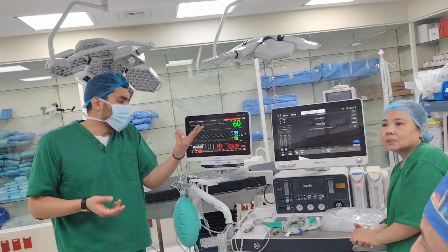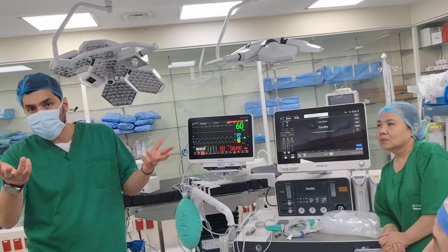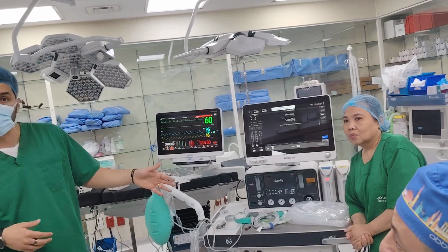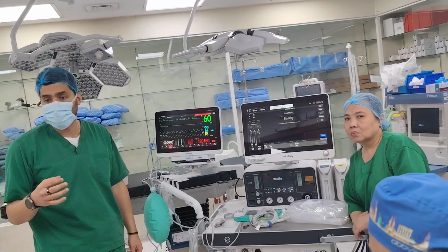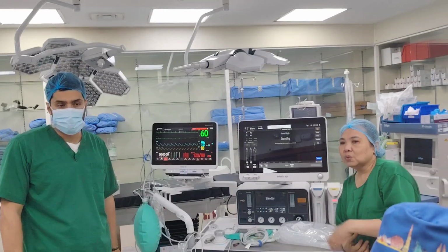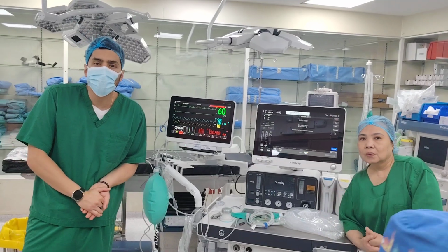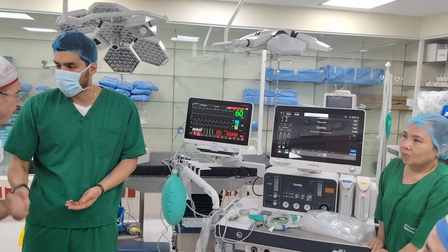Organizer request, two things. To be honest with you, that's one you have to buy. Second thing, honestly speaking, maybe next time you can give this feedback to the engineer: hey, listen, next time you buy this machine, make sure you have 1, 2, 3, 4, 5. You understand? I understand. The problem is, who requested this? We don't know. The machine is just coming. I don't know how the procurement works. No, actually, they buy in bulk. They bought 96 units of Mindray A9. They just provide them.